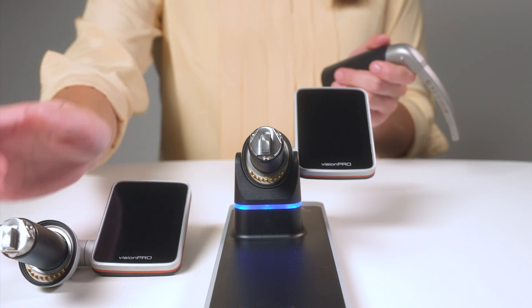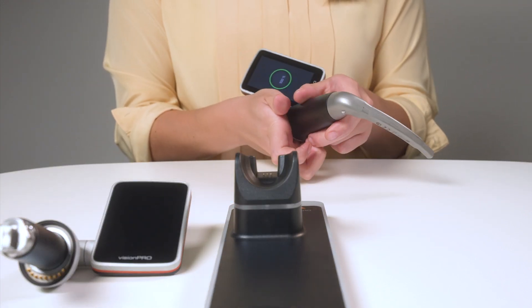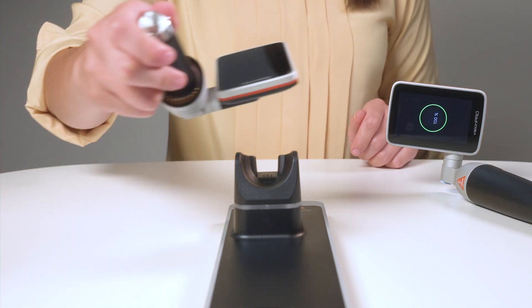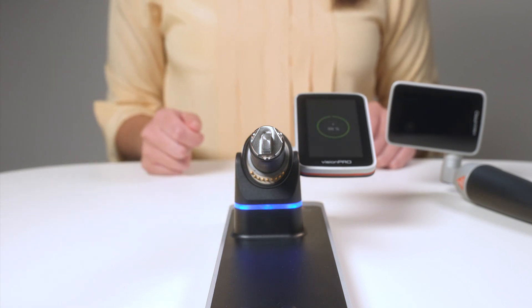Our device can be split into two parts: the display unit and the camera handle. With a second display unit, one can be out in use, while in the meantime the other one gets charged. In case you run out of battery, simply switch the display units and you have another unit with 100% capacity available.